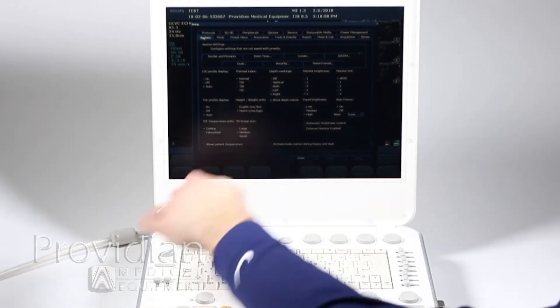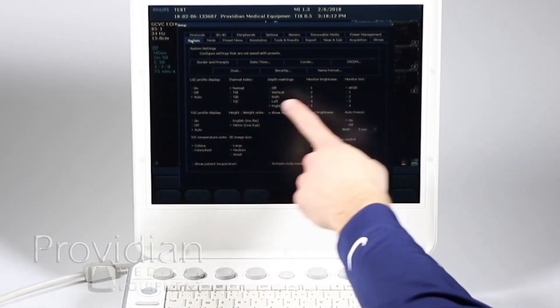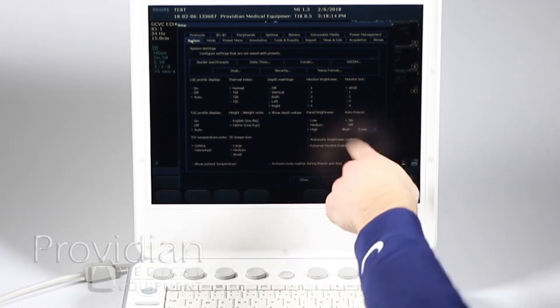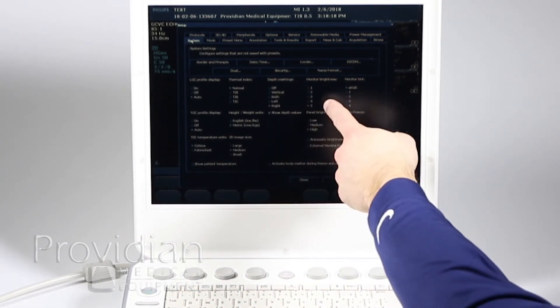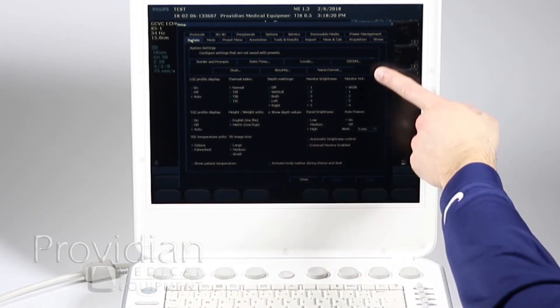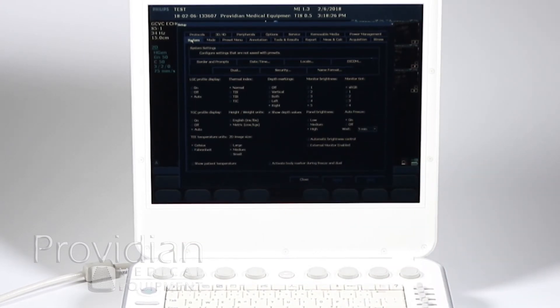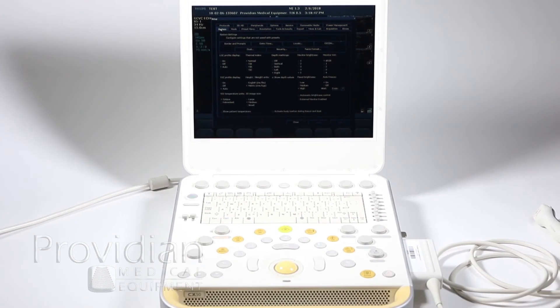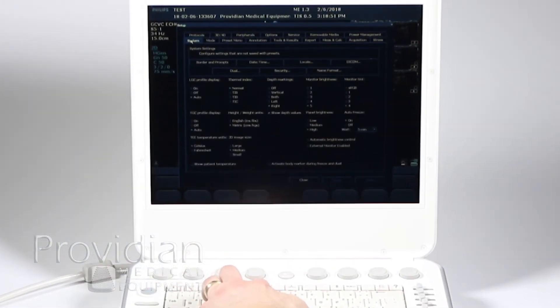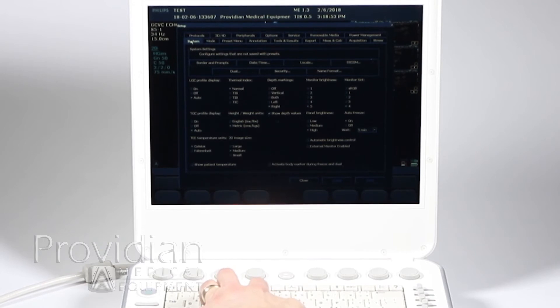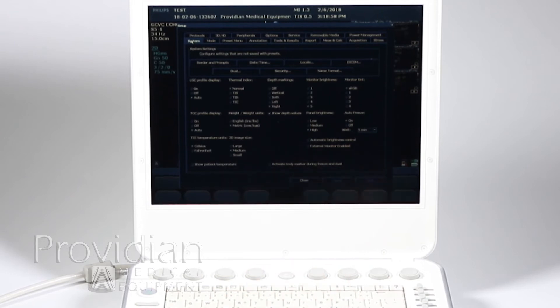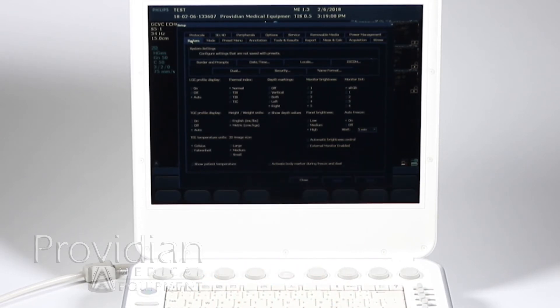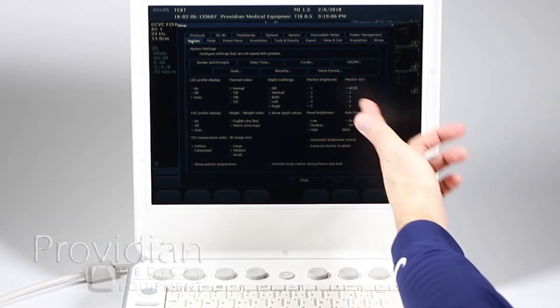A lot of these things I will skim over in order to make it a little shorter, you can experiment with them on your own. LGC profile display, thermal index, depth markers, you want them on the left and right, monitor brightness. I showed you how to do that with control M but honestly it's just easier to do it from here. Monitor tint, that was also a shortcut key, control T. Panel brightness, that's here, that was also control B. Auto freeze you want it to go off or after five minutes. You have your automatic brightness control, external monitor if you've got one connected, TGC profile display, and English or metric.